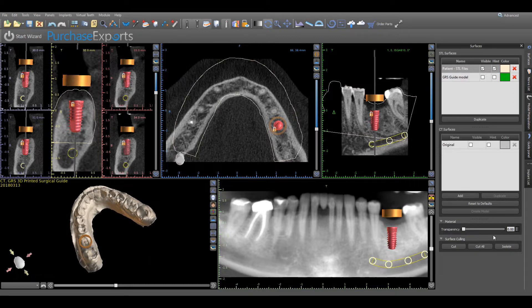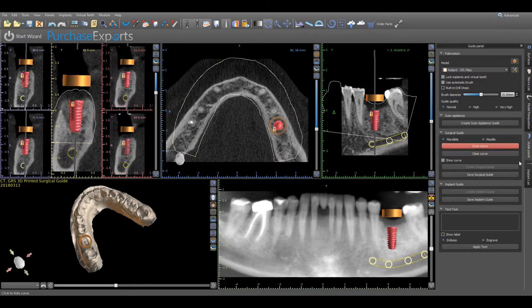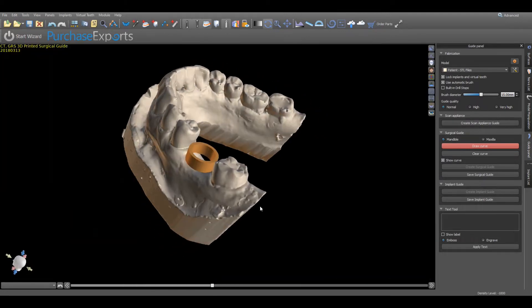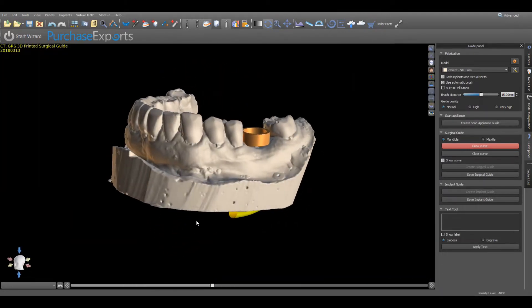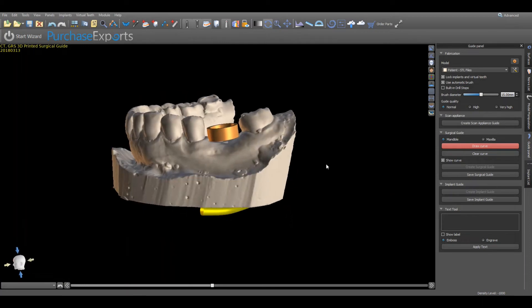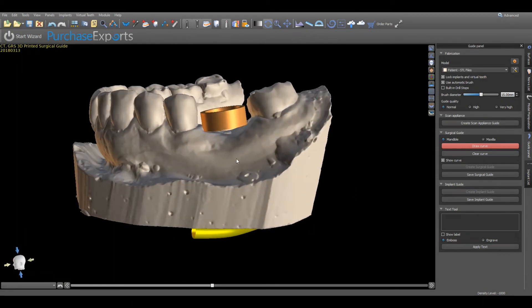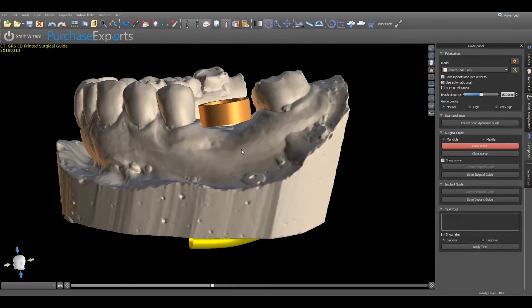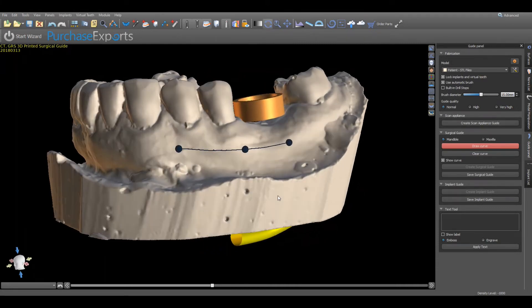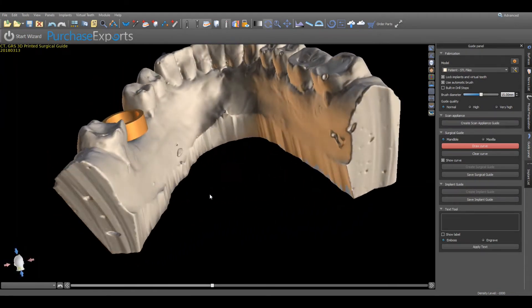Once completed, click on the Maximize button associated with the 3D virtual model and orient the model to get a clearer view of the patient's oral anatomy. To begin designing the surgical guide, simply place the cursor in the desired location for the surgical guide flange extension, hold down the Shift key, and left-click the mouse button to apply a virtual node on the 3D model. Each subsequent node will be connected to the preceding node with a thin line indicating the final position of the surgical guide flange extension.